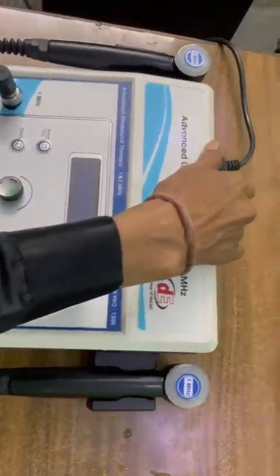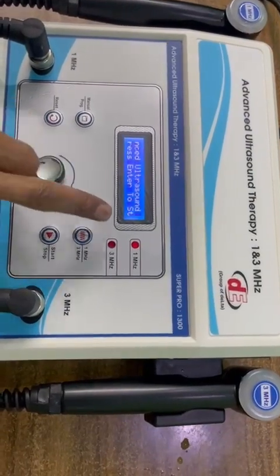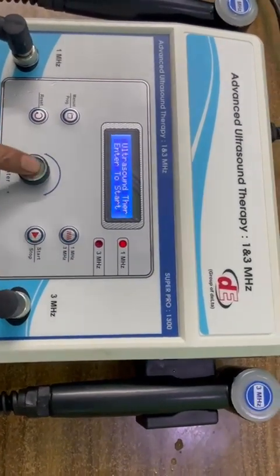Now press switch on the machine. Display is showing enter to start. This is enter button. Press it.